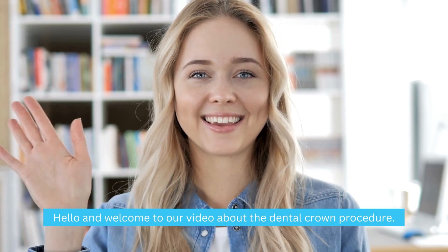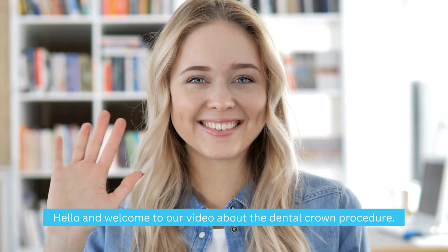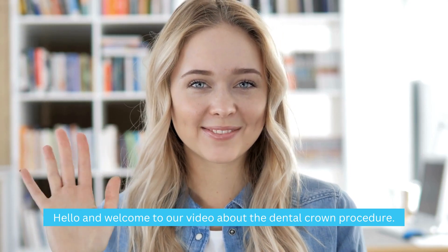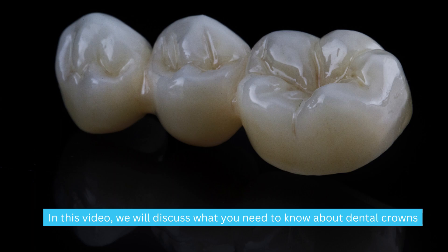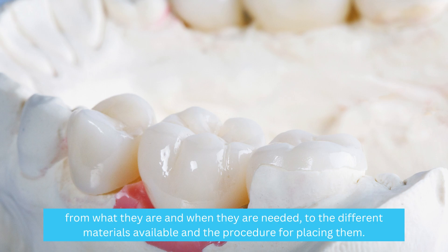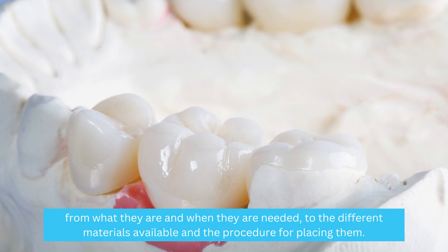Hello and welcome to our video about the Dental Crown Procedure. In this video, we will discuss what you need to know about dental crowns, from what they are and when they are needed, to the different materials available and the procedure for placing them.